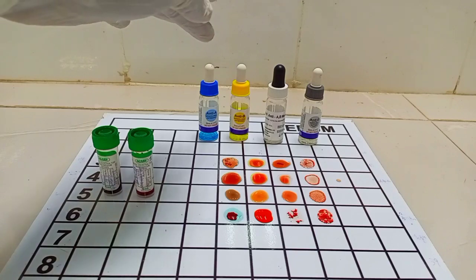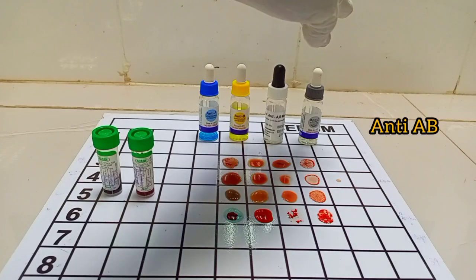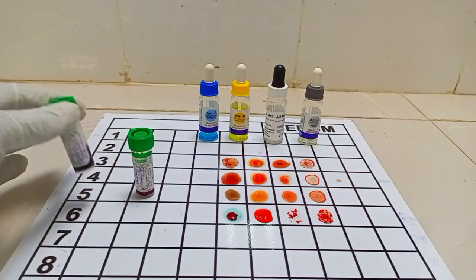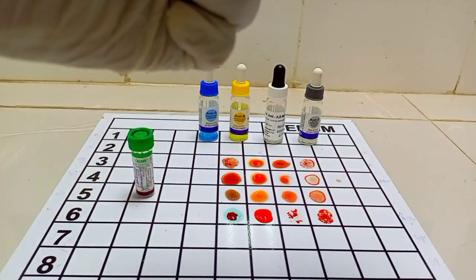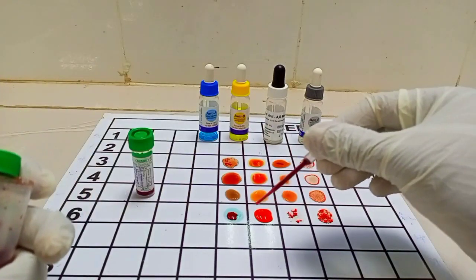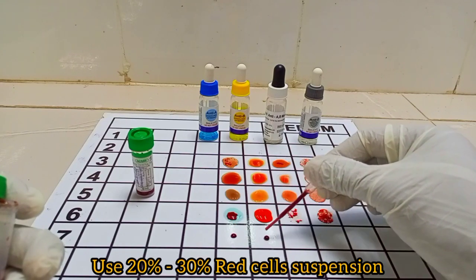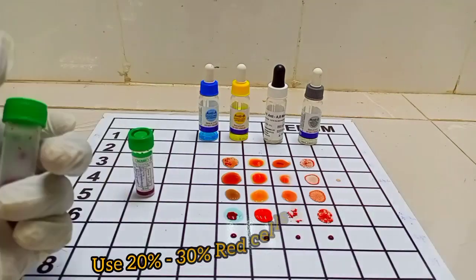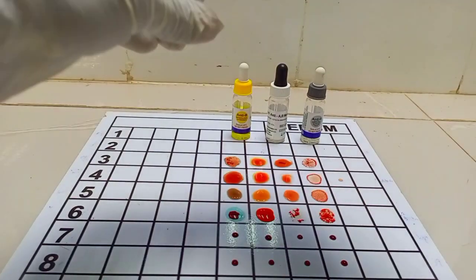I have my Antisera A, Antisera B, Antisera AB, and of course Antisera D. So quickly, without wasting time, all we have to do is to take from each of the samples and spot them in four different places. Then I add my Antisera.